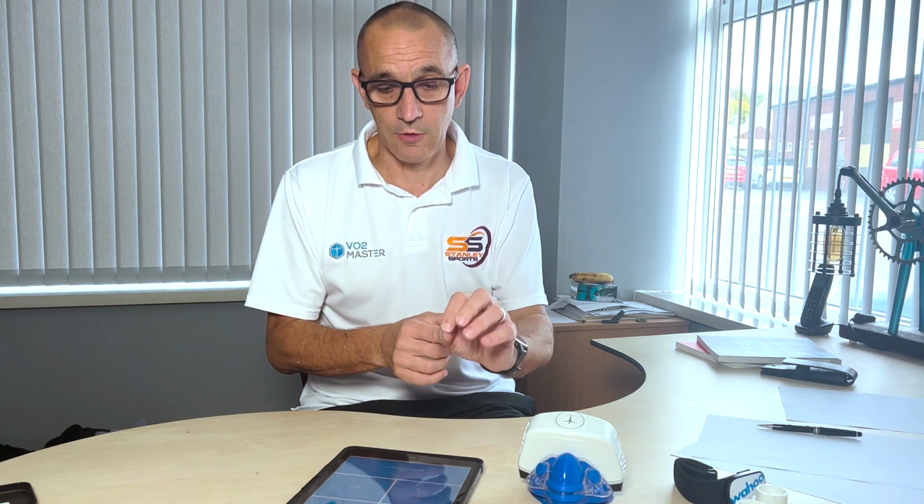Doing that test, that allows you to find your training zones and make sure you're giving the athlete the right information. From a test-retest point of view, you get critical data like peak oxygen consumption, peak heart rate, and obviously the device that you're using might be peak running speed, it might be peak power output on the bike, but you can now track athletes' progress over time. So that gives you a measure of assessing training zones and reassessing progress as the athlete goes on.